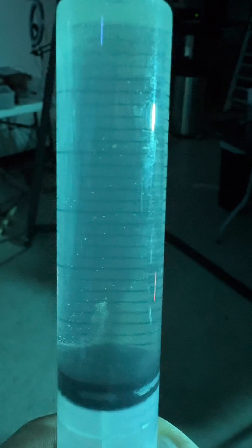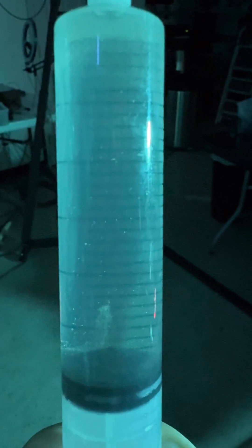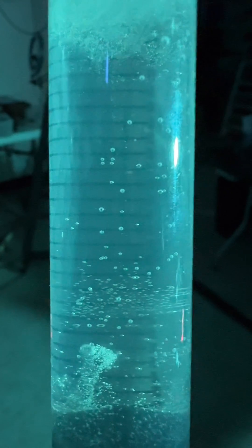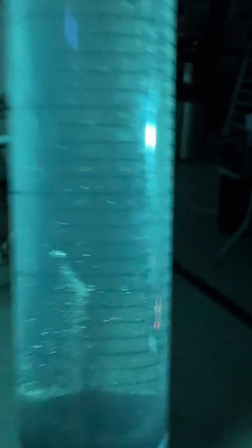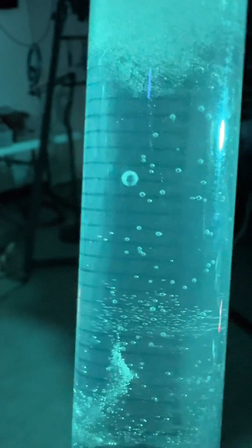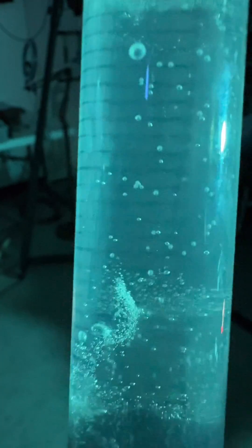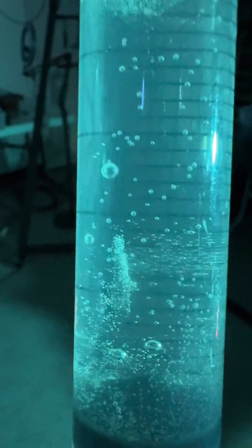Let me show you — here's a great example of what's happening in our blood when we pull with too much negative pressure and why our blood is hemolyzing. I'm going to suction that with negative pressure, pull on that plunger. Look what happens to the bubbles — they expand and then collapse, getting bigger and smaller. This is also what's happening to our blood cells. The red blood cells expand and then collapse, and we are manipulating them to do exactly that.